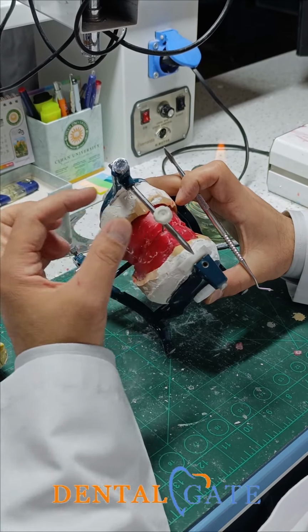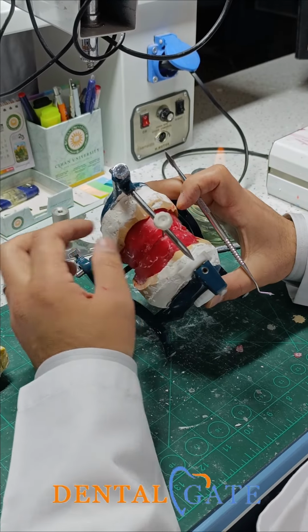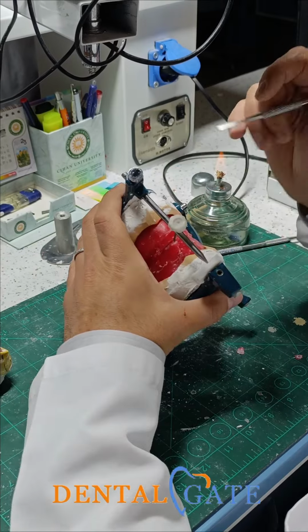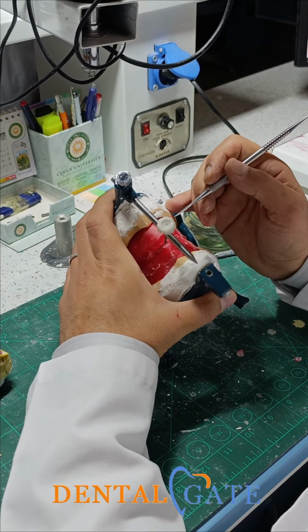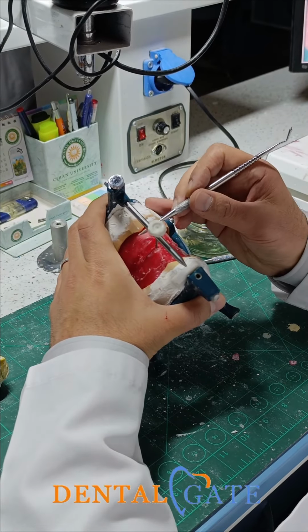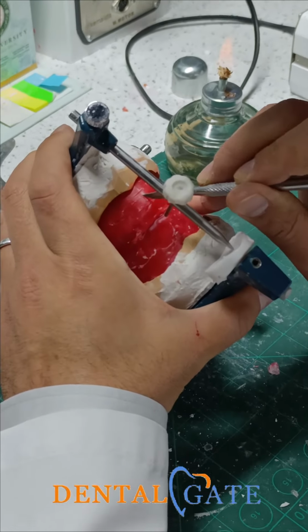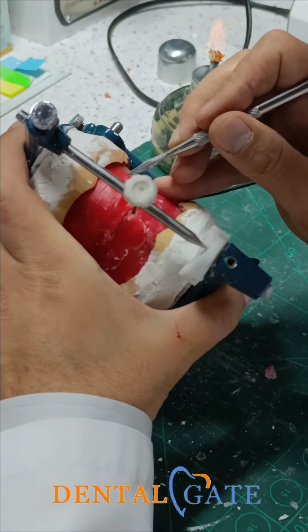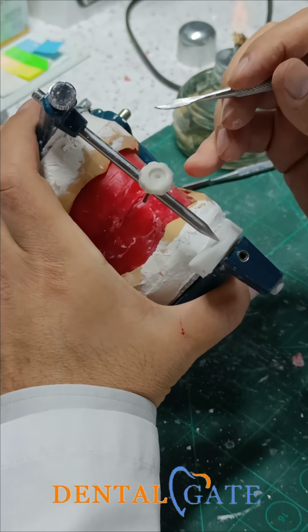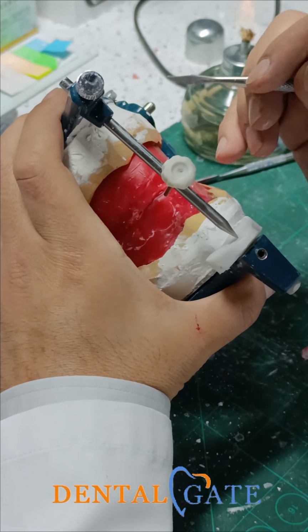Okay? Unfortunately, we don't have a patient's mouth, and the centric should be performed in the lab. So in the previous lab, we mentioned that the bite has a benefit and many advantages when we carry it out in the patient's mouth. We can make a smile line here. We can make the midline regarding the face profile. We can make the corner of the mouth. Okay? Otherwise, there is no patient's mouth now. We can depend upon the incisive papilla.